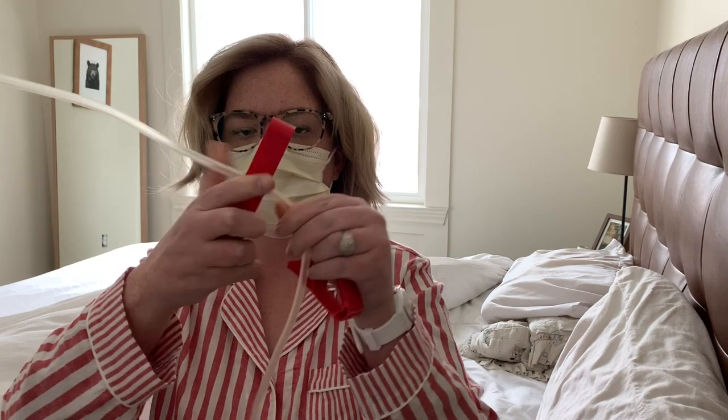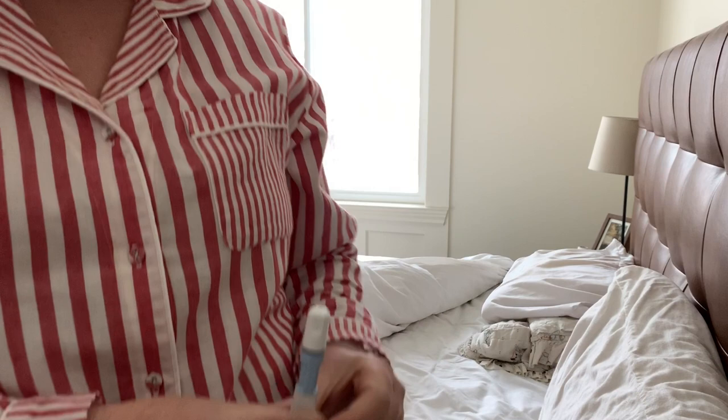I usually just hunker right in here, put my pillow up, pull my blanket back, and hop into bed. So this is the connection part. For this I'm going to take a mask and put it over my face like so. Then I'm going to take these clamps and clamp off these tubes. Next, I washed my hands before this, but I'm going to rewash — you rub this in until it's dry. Never wave your hands in the air to dry them because you're just going to get contamination, so rub until they're dry.